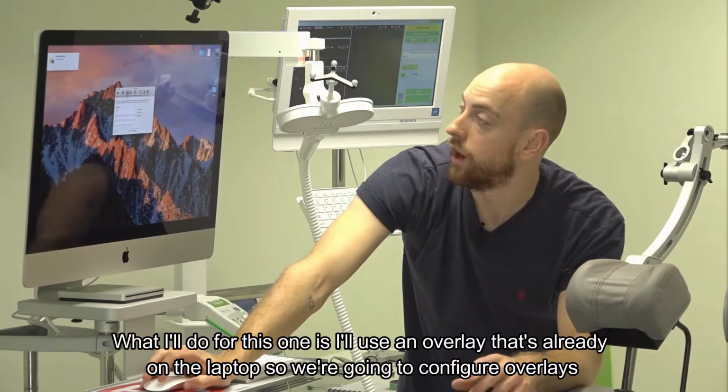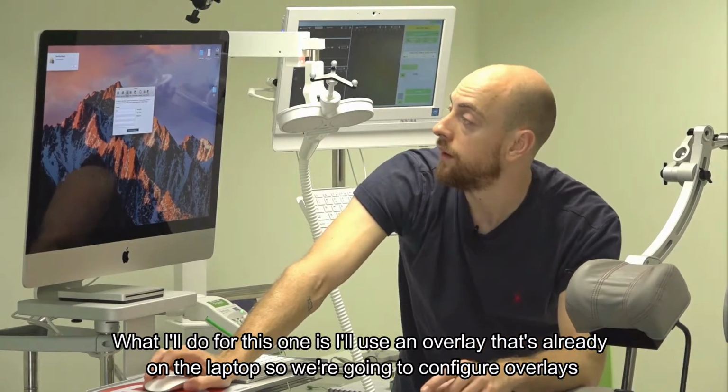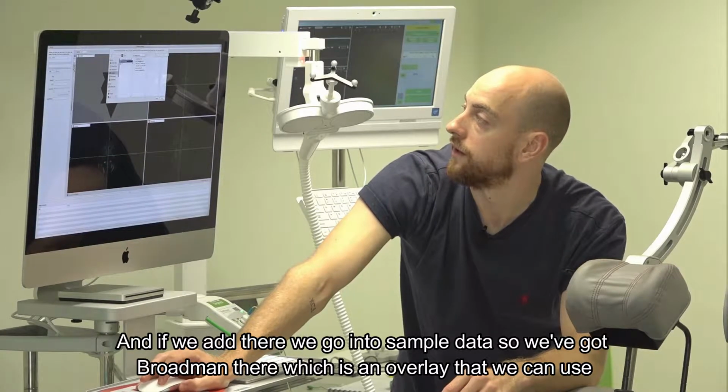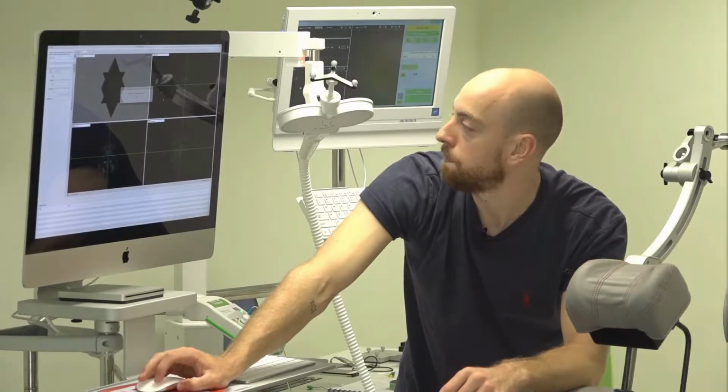You bring that in. What I'll do for this one is use an overlay that's already on the laptop. So we're going to configure overlays, and if we add there, we go into sample data. We've got Brodmann there, which is an overlay that we can use.